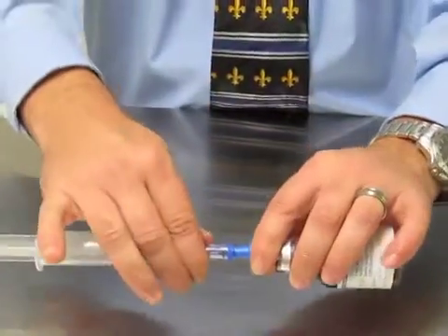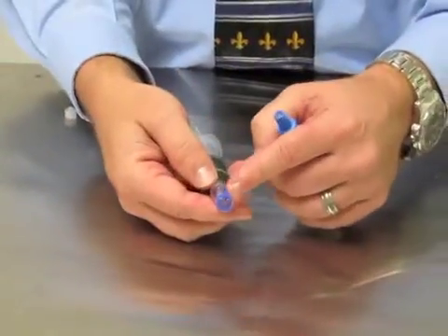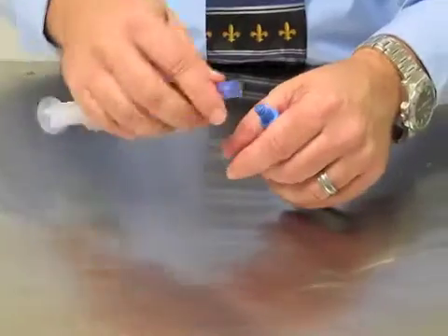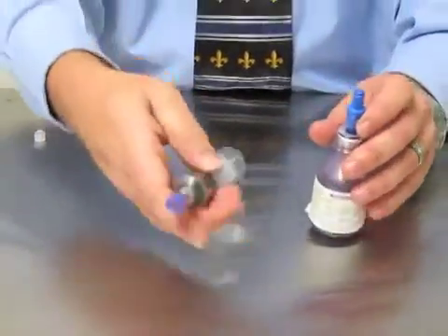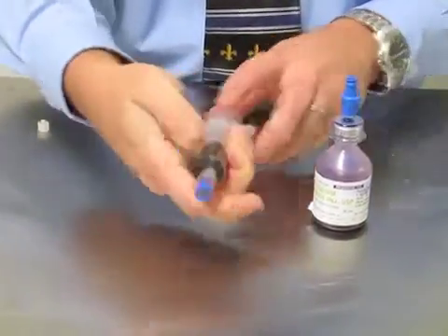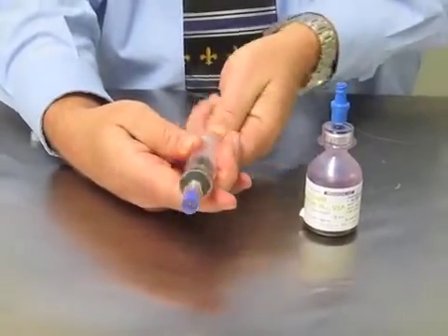As you can see with the Spiros, when I disconnect, I want to do a slow disconnect. There's a poppet on the inside that creates a small amount of negative pressure to clear these mating surfaces, so I want to do a slow, deliberate disconnect. As you can see, I can knock the syringe — it's closed and it's not going to spill or aspirate.